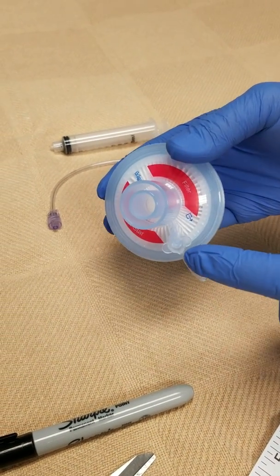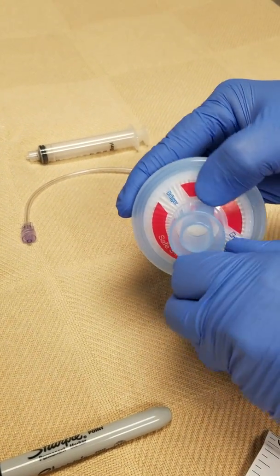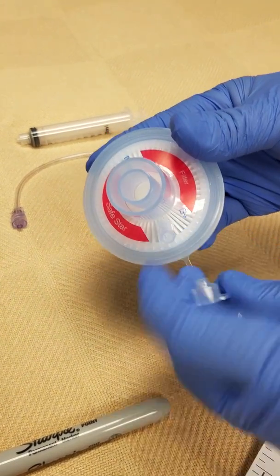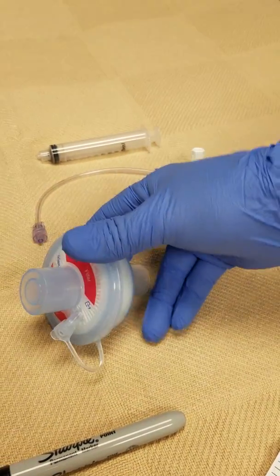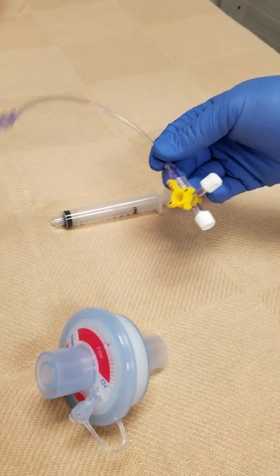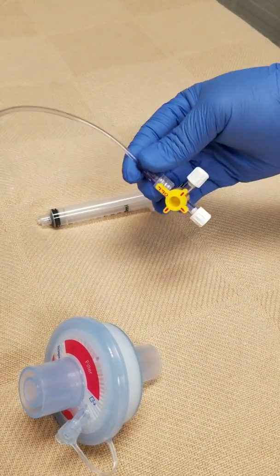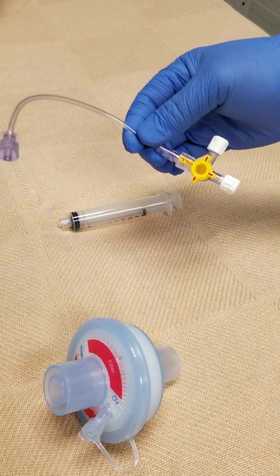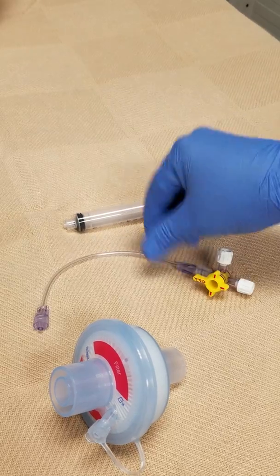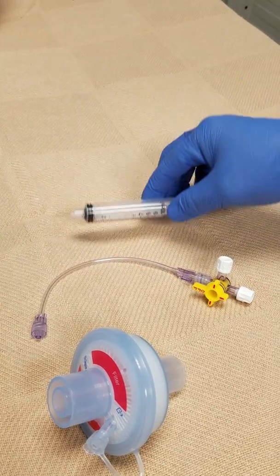The filter has a little gas line port, but I'm going to use this port as a water drainage. You can also get this tubing line with a stopcock — nurses have a bunch of these, you can get excess from nursing. Or since our ECMO has plenty of this, I'm using one from the ECMO. And you need five or ten ml syringes to start.